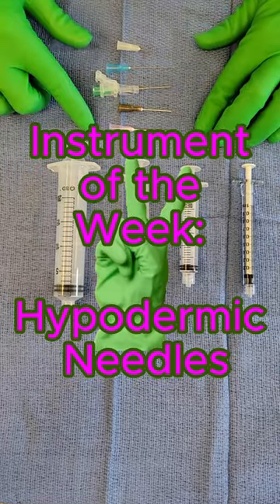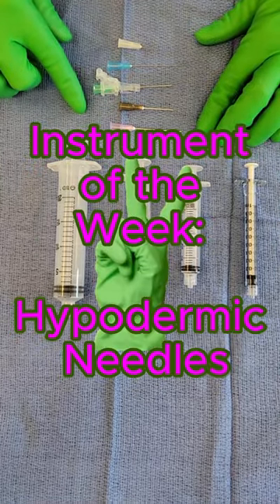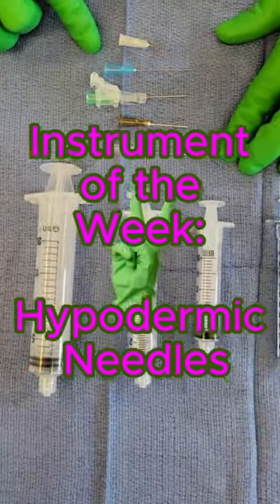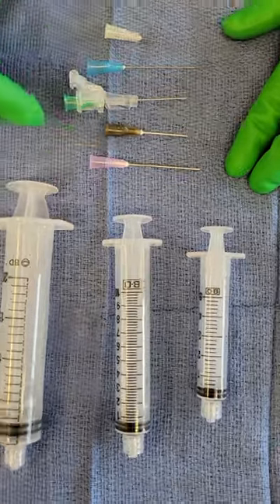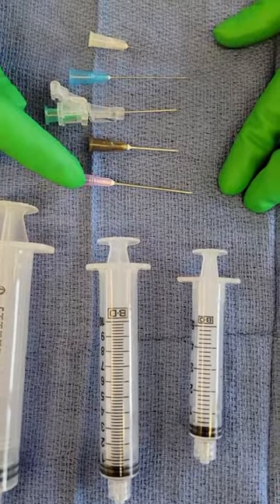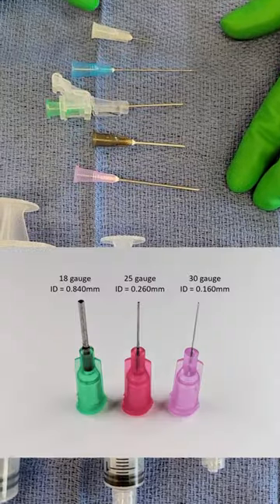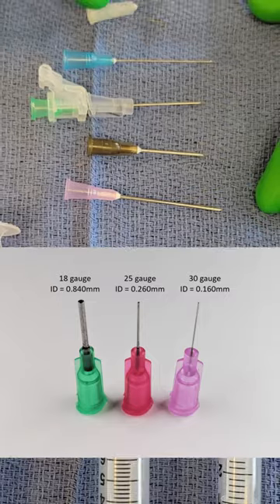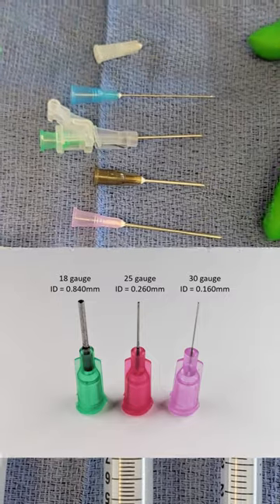We wanted to compare and contrast that hypos come in different sizes, as you can see here. This is an example of an 18-gauge hypo, whereas this is an example of a 30-gauge hypo.